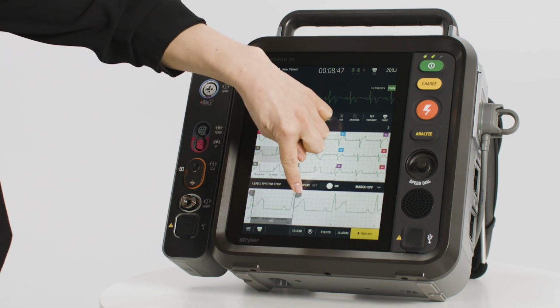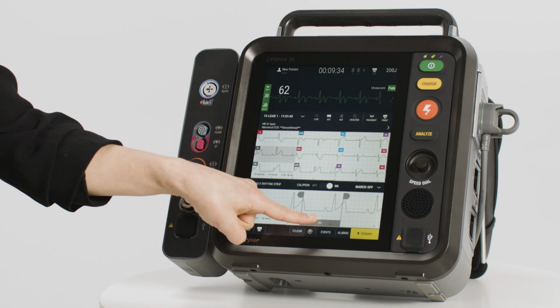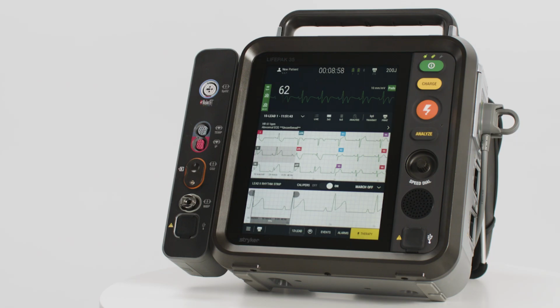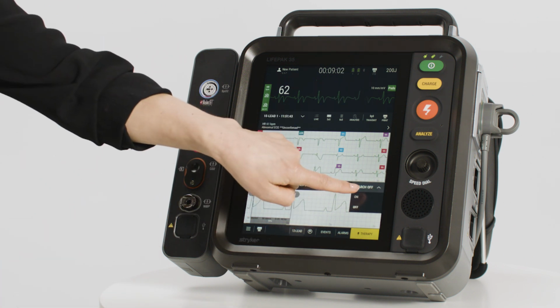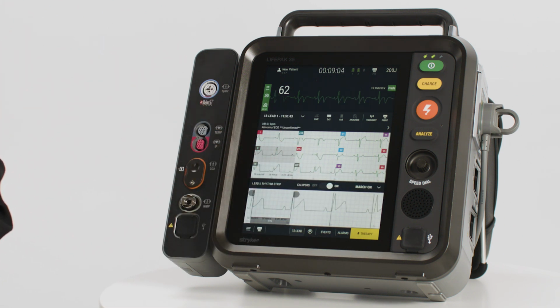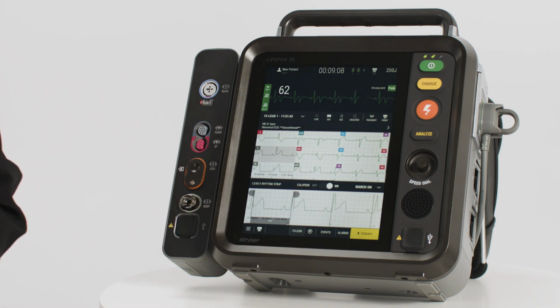You can also press Hold and slide the measured duration over the ECG for easy comparison. Turning on the March feature automatically reproduces the interval through the rest of the ECG rhythm strip. Clinicians can visually assess the regularity or irregularity of the ECG intervals. The analysis also includes the STJinsight graph.